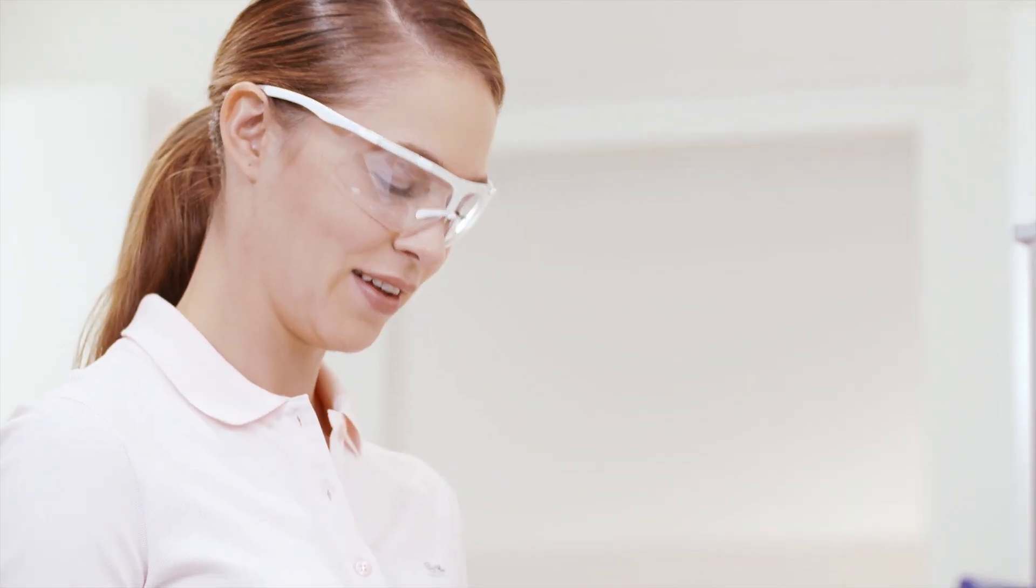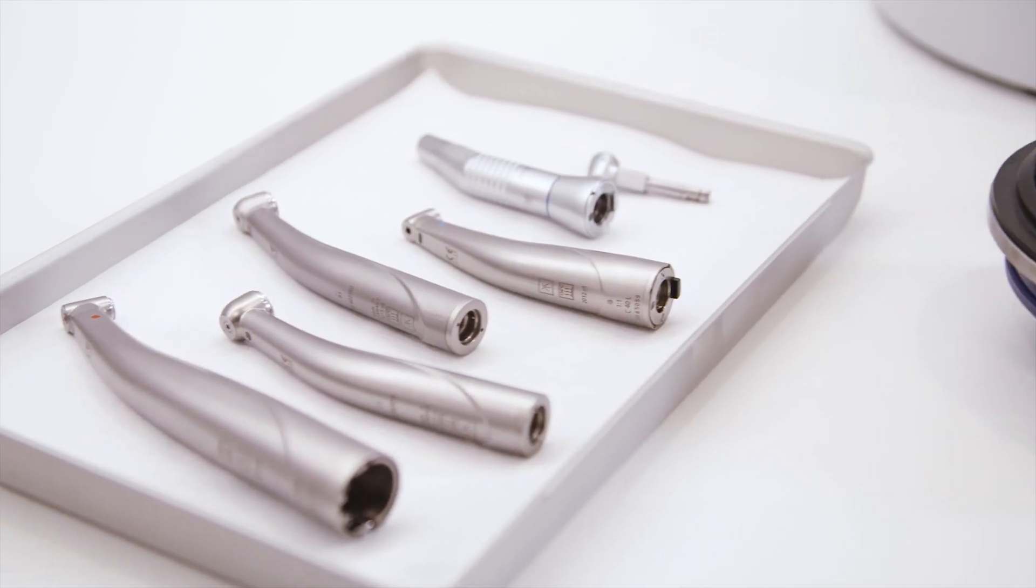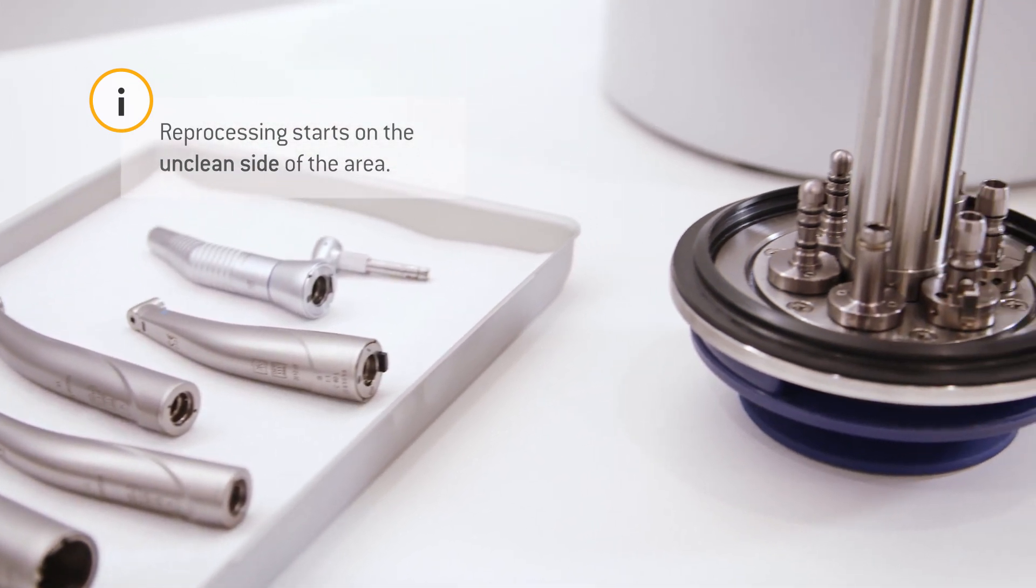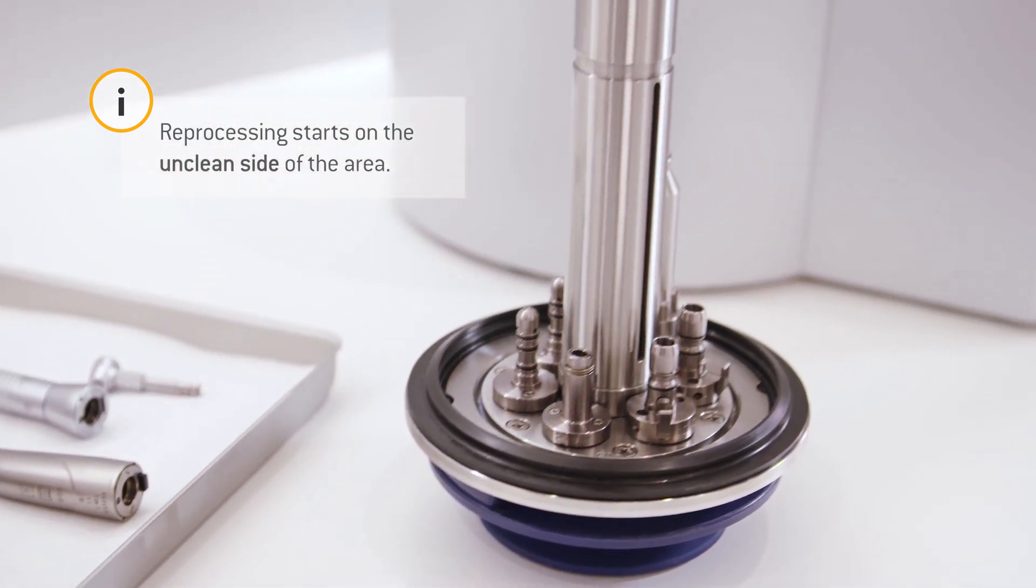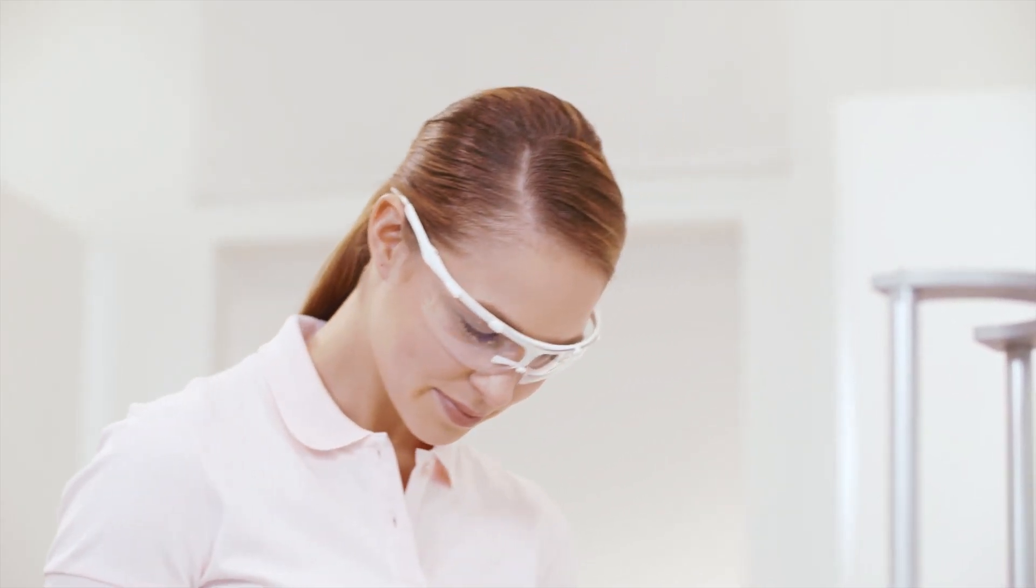Operation of the DAC Universal. With the standard lid of the DAC Universal, you can reprocess rotating instruments hygienically. How is this done? It couldn't be simpler.